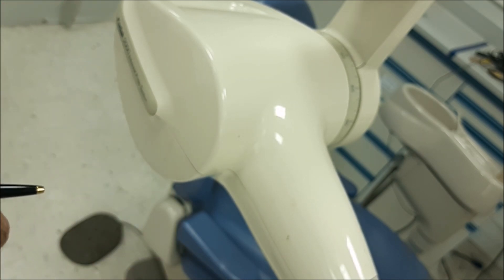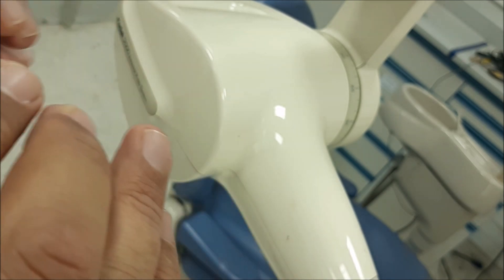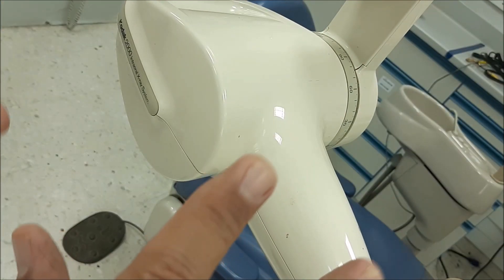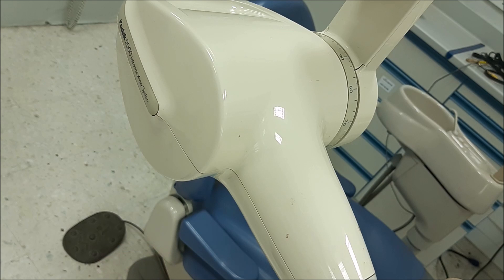Most x-ray machines have a cooling down period. If you overuse the x-ray machine, it will not work. It will be thermally protected and given time to allow the x-ray target area to cool down.